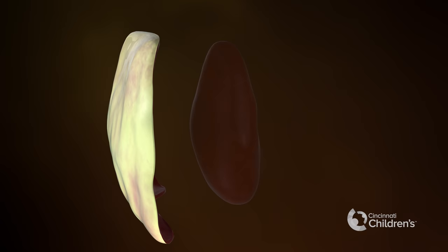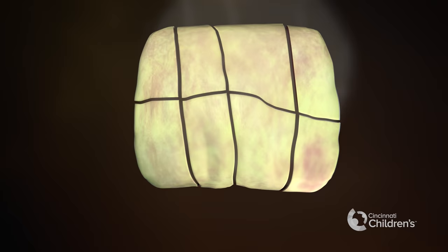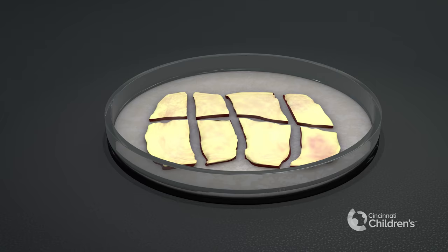If the whole ovary is removed, the specimen is sent to pathology for evaluation prior to tissue processing and freezing. The ovarian cortex is then dissected from the ovary, cut into one to two centimeter tissue strips, frozen and stored for future use.